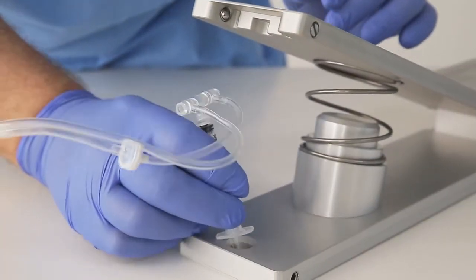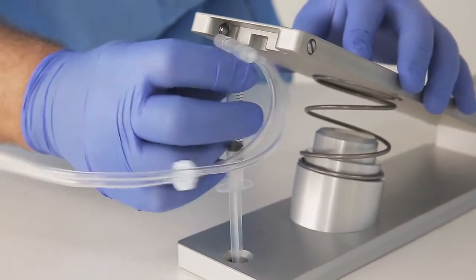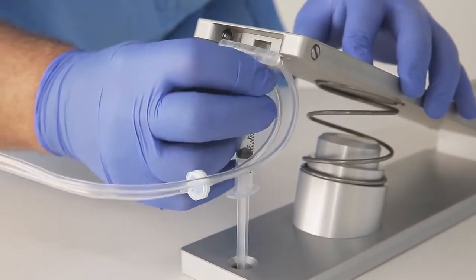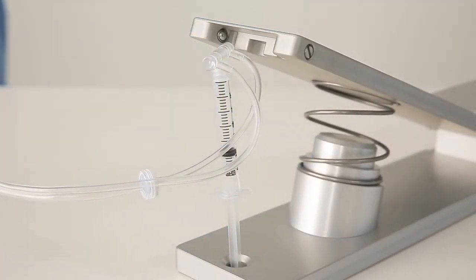Inserting the plunger rod correctly into the bottom recess but then orientating the manifold incorrectly with tubing facing the pump will make loading impossible.